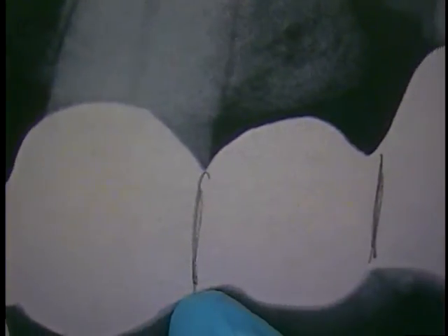This is the pre-op x-ray. It shows you which teeth were removed. Tooth numbers 13 and 14 were removed, and then the canine, number 11, was kept as part of the bridge. The periodontist sectioned here, removed this segment, and we placed two implants. It had to be grafted bone, which was deficient at first. This represents a trace over that x-ray, superimposed on top of the implants where they were actually placed. With this type of implant, we're subcrestal quite a lot, and that's good because the narrow neck of the implant is the key. The tissue seals a little bit nicer, a little better.